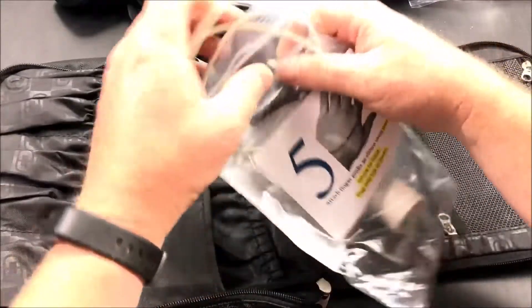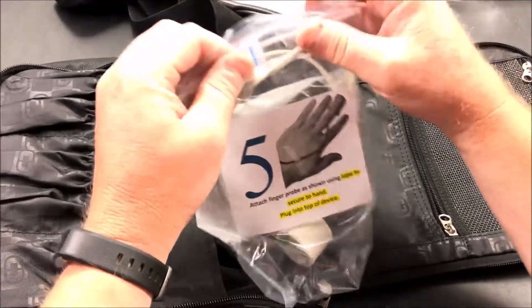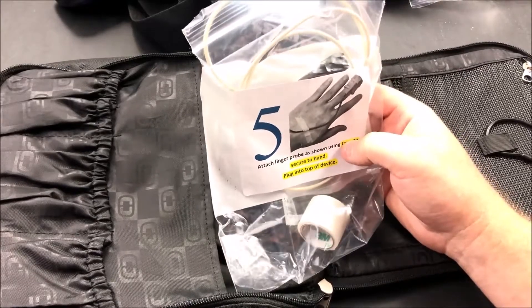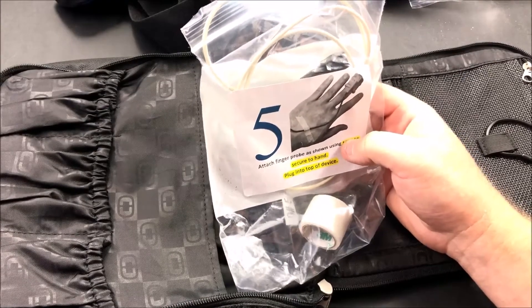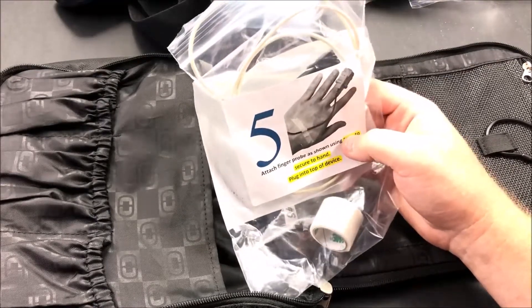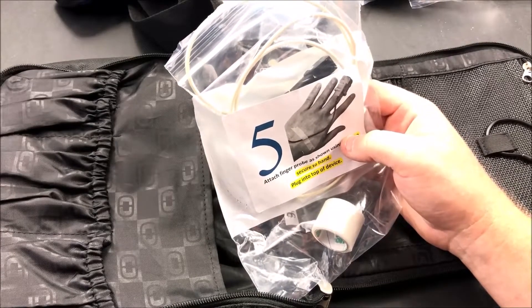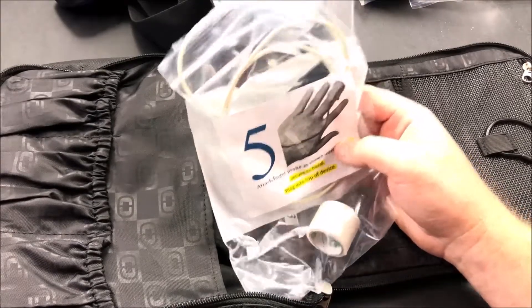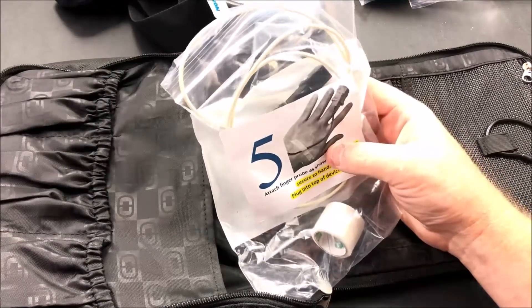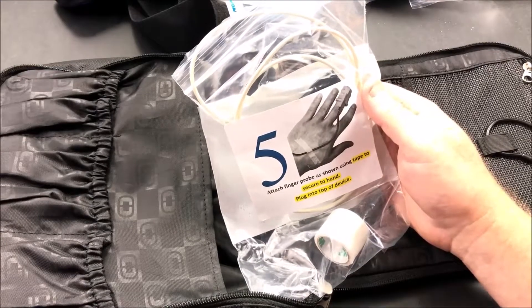That's basically it. I will take this test tonight and bring the device and all this stuff back to the hospital in the morning. They need a couple of weeks to analyze how many apnea events there were and whether or not I would need a CPAP machine, and how severe the symptoms are. I'll be following up with a video if you guys are interested — just leave me some comments below. I read all the comments and I will respond. This is John from John's DIY Playground — have a great day!